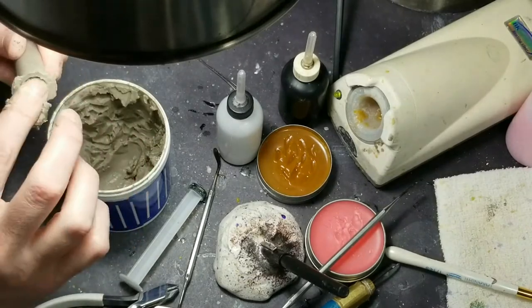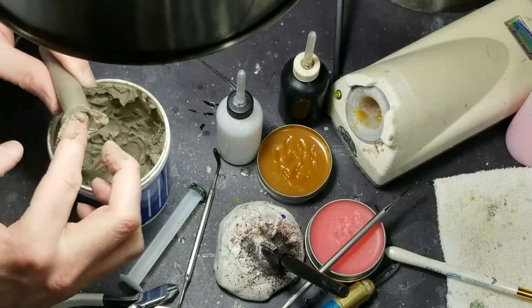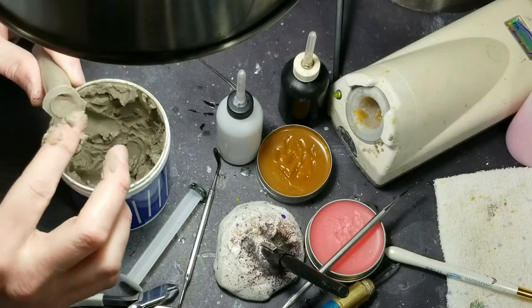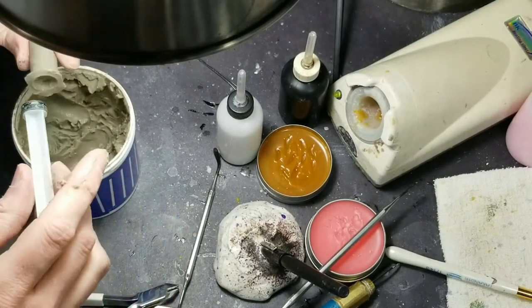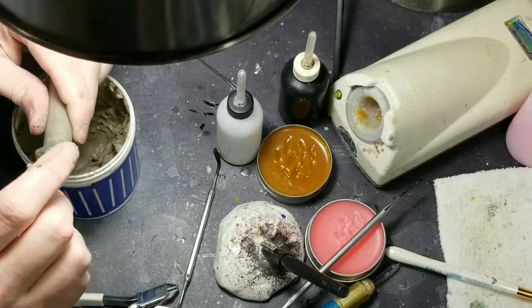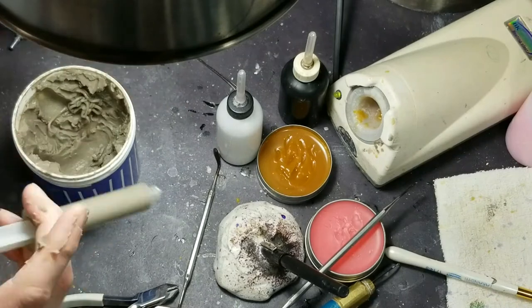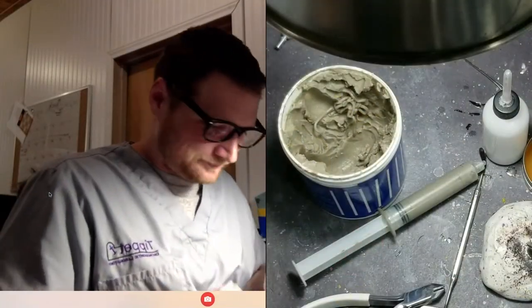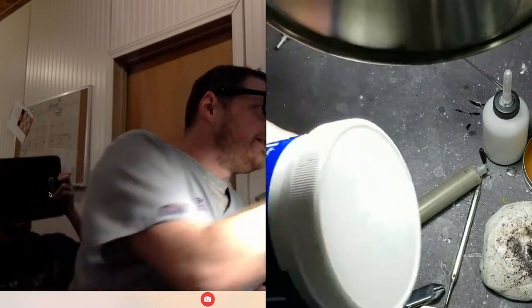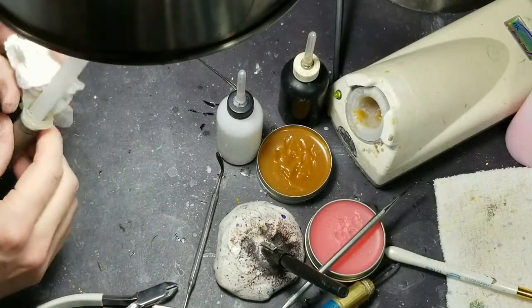Can you get me a paper towel? Just one. Then I put this in and squish it. All right, thank you. That was my little tip of the day — put your heat shield in here. I didn't even get that idea from me, I got it from a wire bender that I trained. He just picked up one of these and shoved it in there and I was like, that's a great idea.